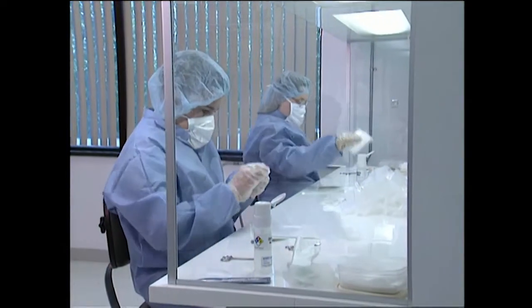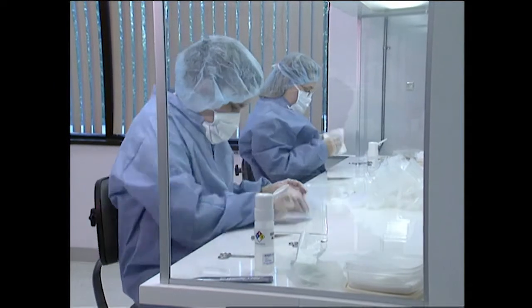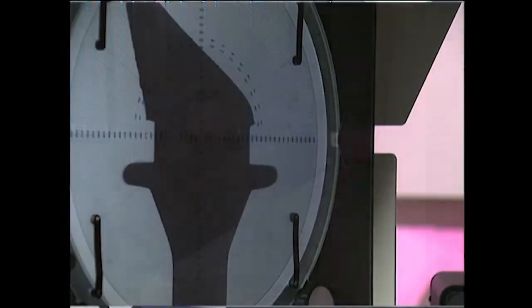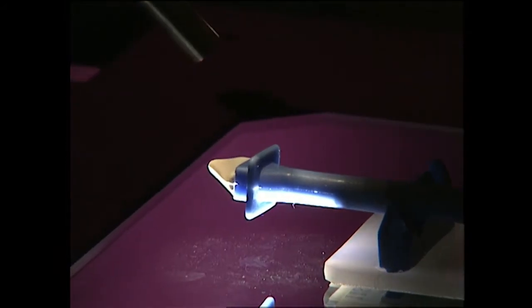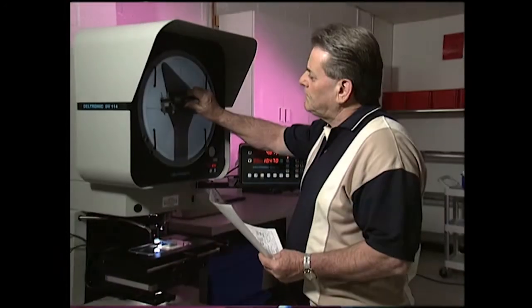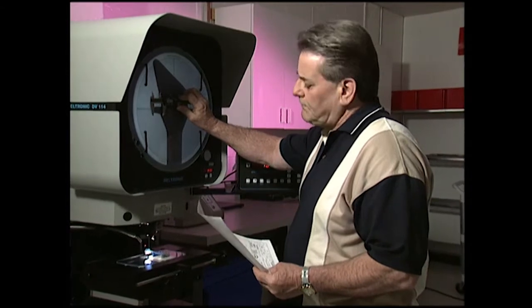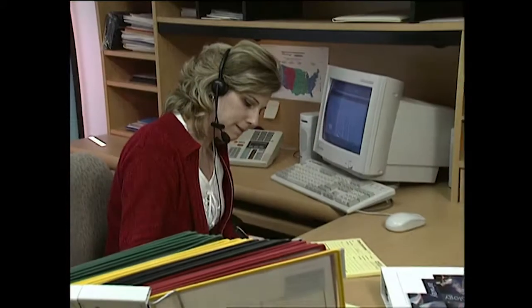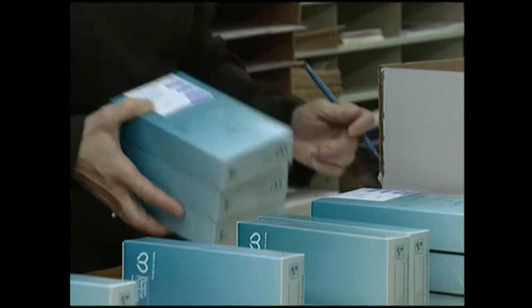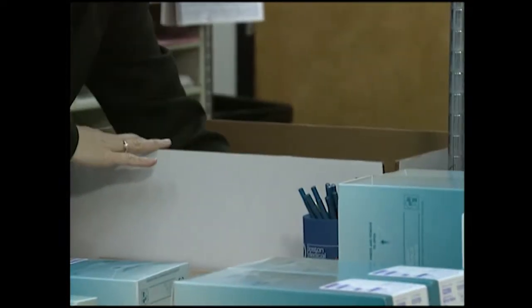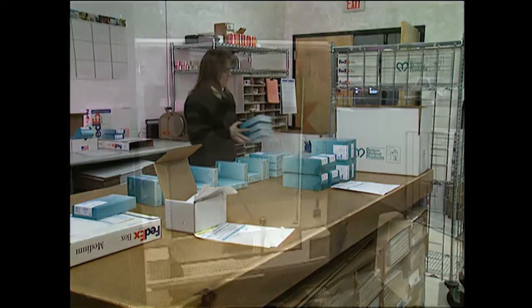Boston Medical Products takes great pride in the manufacturing and quality assurance of each and every product we sell. All of our medical devices are constructed using the highest quality medical grade materials and manufactured under strict quality control procedures. Our knowledgeable and friendly customer service professionals answer technical questions and facilitate orders daily. Most products are shipped the same day they are ordered and delivered according to your specific needs.